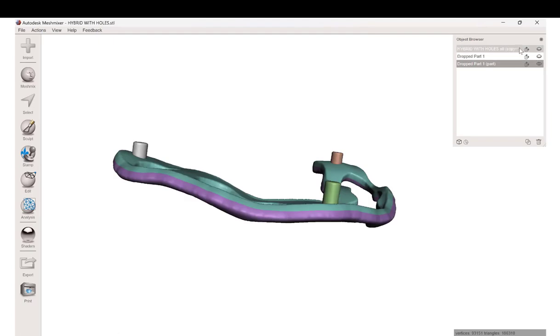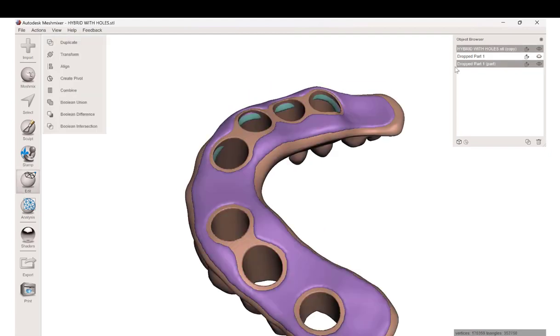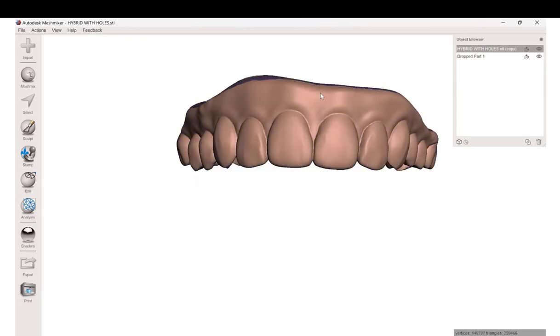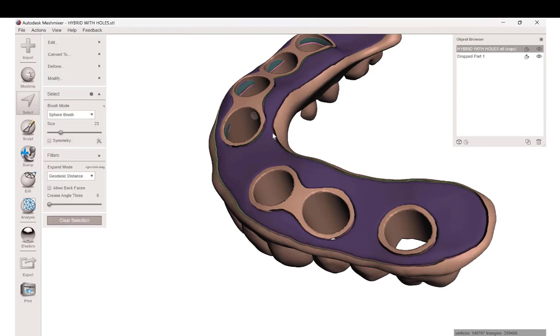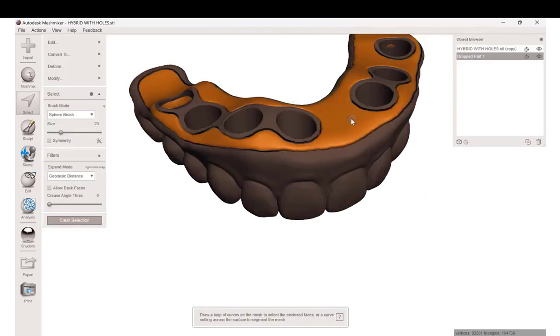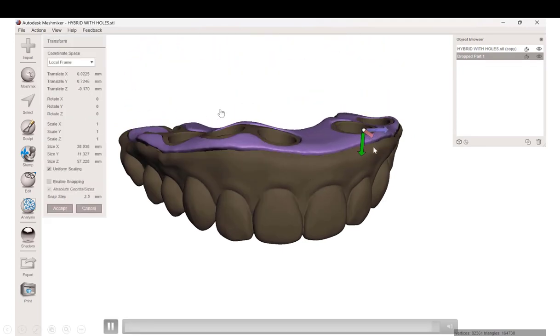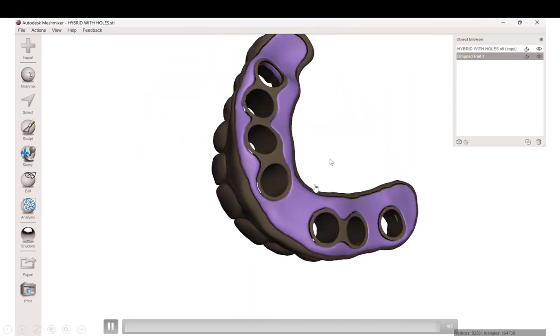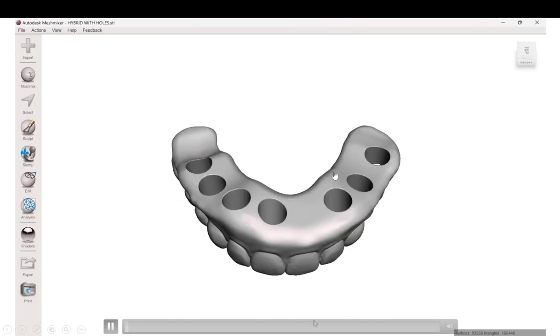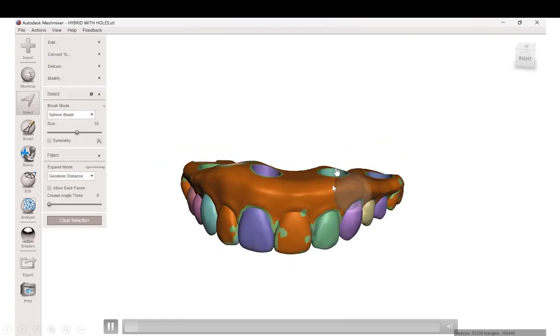I'm going to place little cylindrical pegs here that are going to improve the retention of this. I've imported a cylinder about two millimeters in diameter and I'm just positioning that under a bulk of material, like under the mesiolingual cusp right there. You can stretch those up vertically, but notice I'm not spinning them or changing their orientation because these all have to be parallel to be able to draw with that. So I'll join all of those together, combine them with a Boolean union, and now this entire shape I'm going to offset by 0.3 millimeters — creating an entirely new surface that is 0.3 millimeters larger in all dimensions than my original shape. Then I take that offset surface and subtract it from my original solid hybrid. Now when we turn both files on, you can see the cradle bar substructure and the printed superstructure.